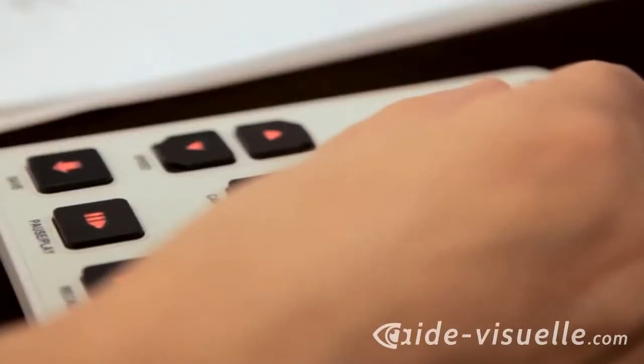Or it can be used in reverse for, let's say, a lady wanting to apply their makeup. You can actually zoom in and maybe shave your sideburns or trim your goatee or your mustache.